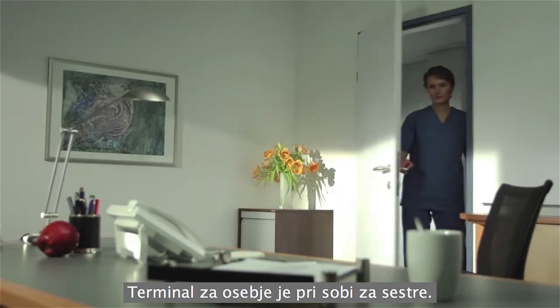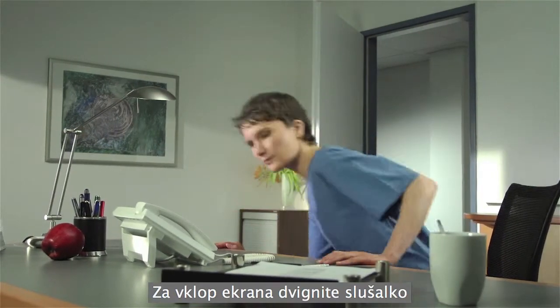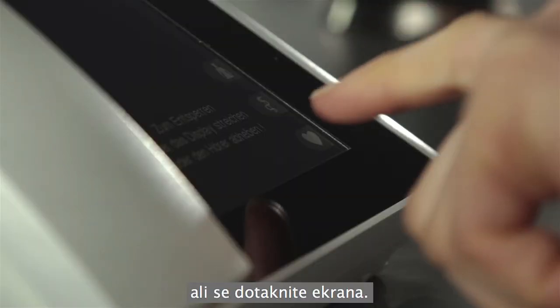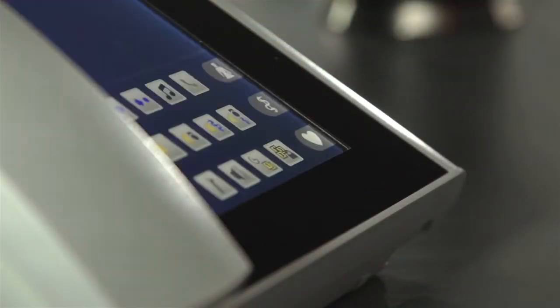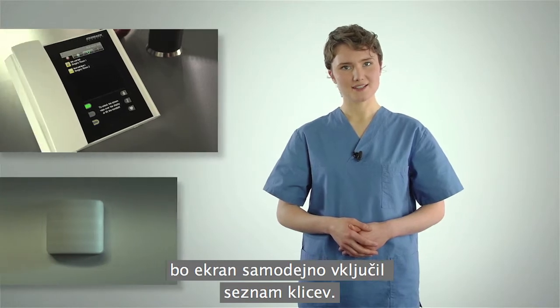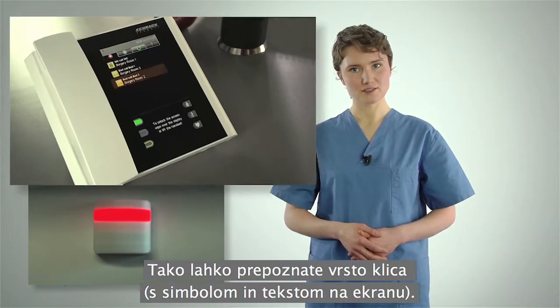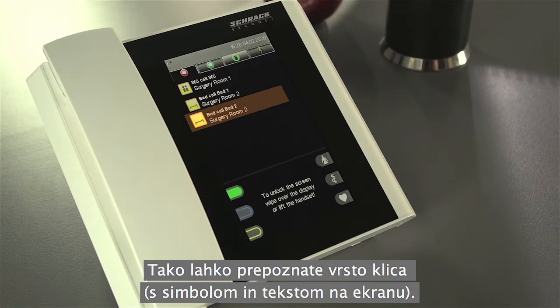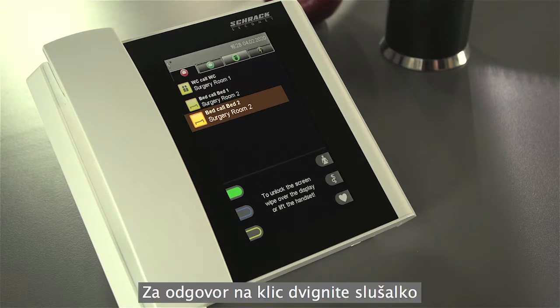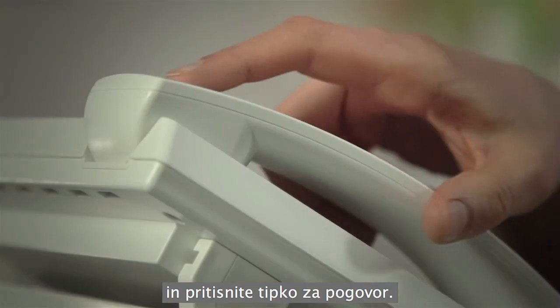You'll find the staff terminal at the nurse's station. To activate the display, either lift the handset or swipe across the screen. With an incoming call, the display automatically switches to the call list and you can identify the type of call from the displayed symbol and text. To answer the call, lift the handset and press the displayed call.